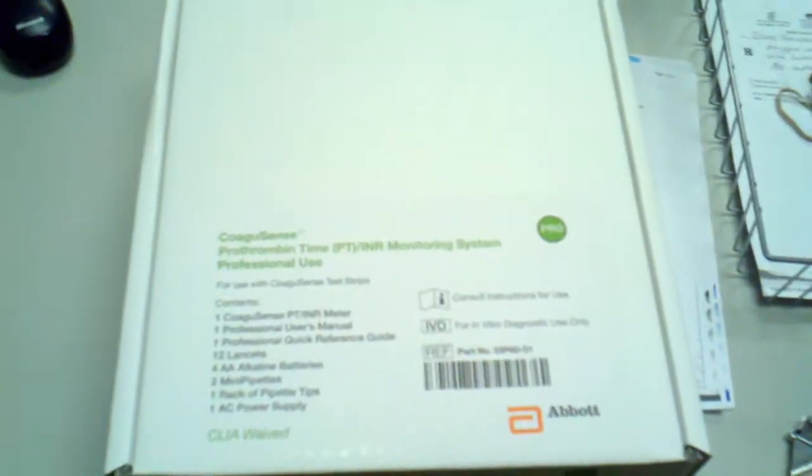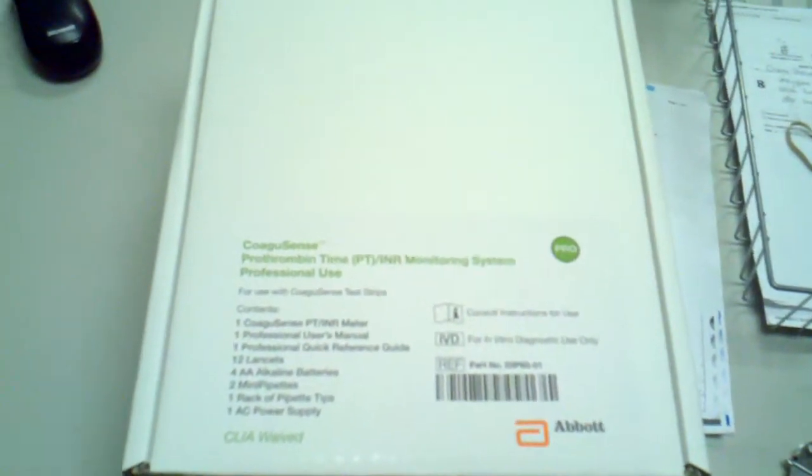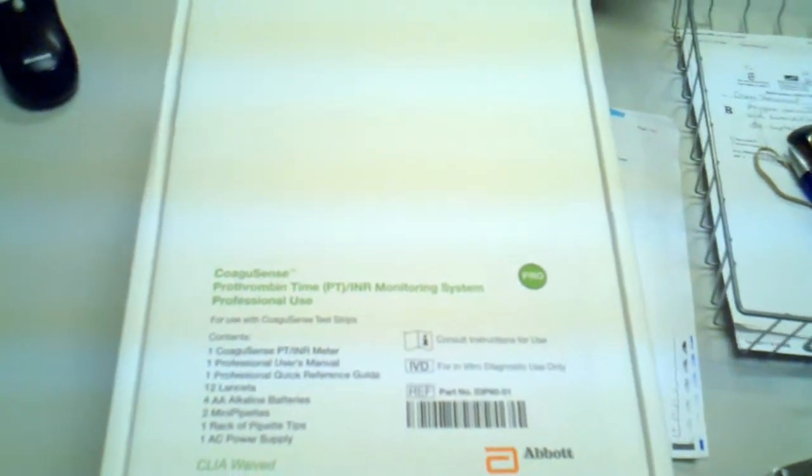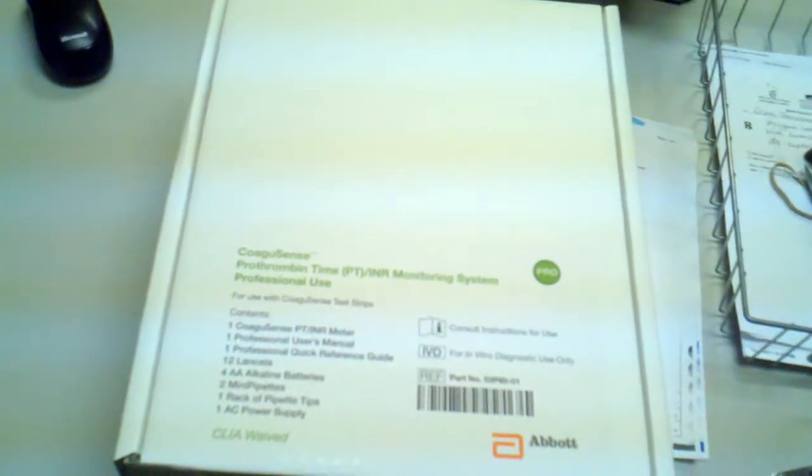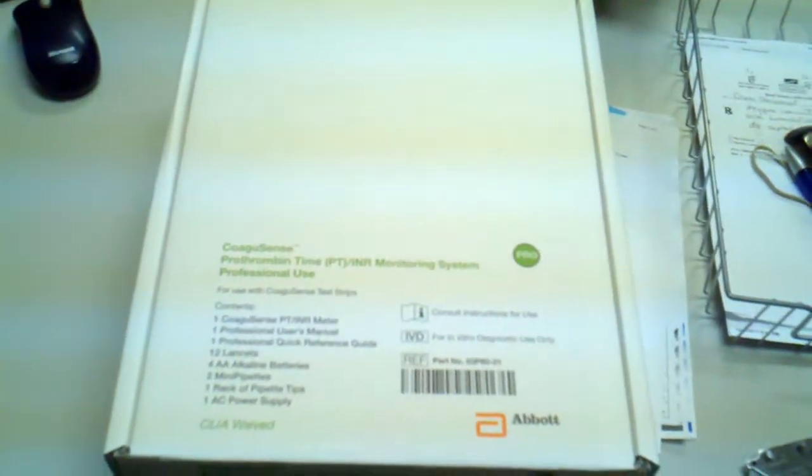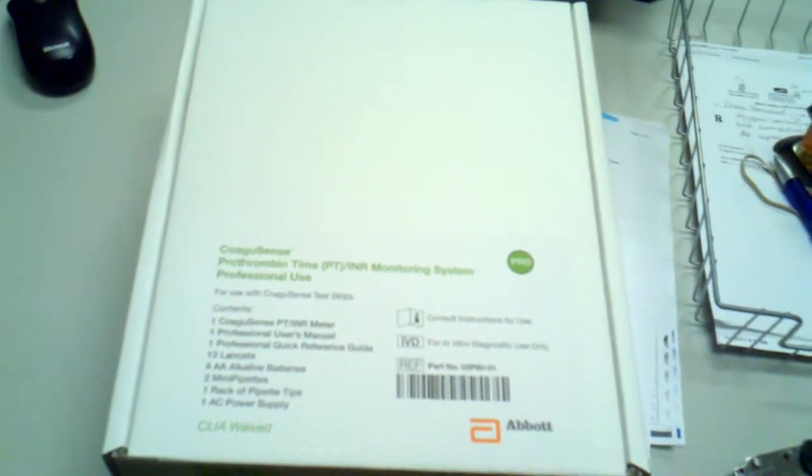We sell these to the public and through the doctor's office. So all we need is your doctor's information, and we will drop ship it right to that particular physician, and then the physician will handle it from there. That's the key here.